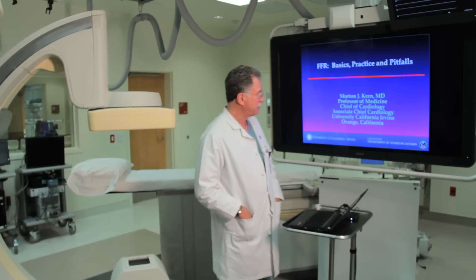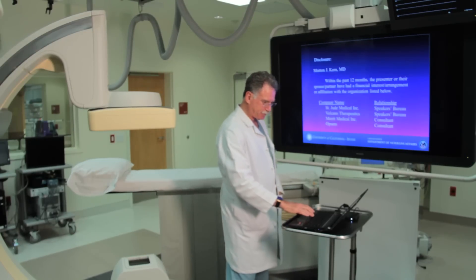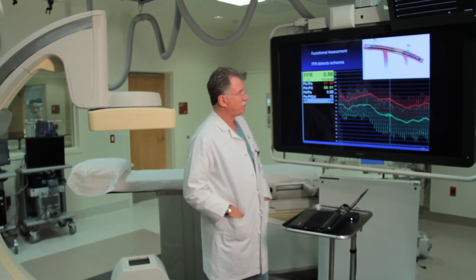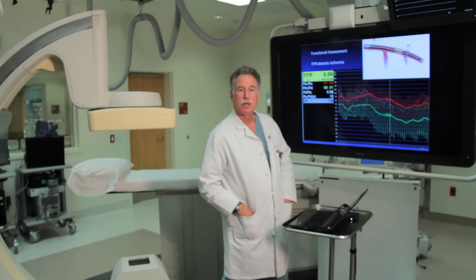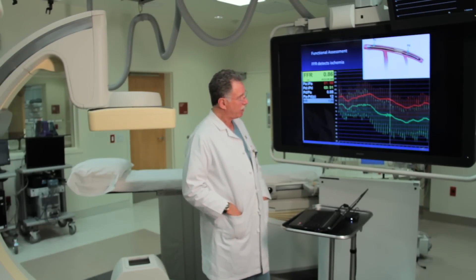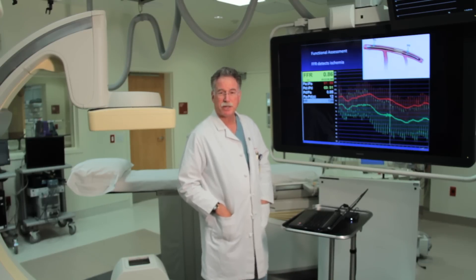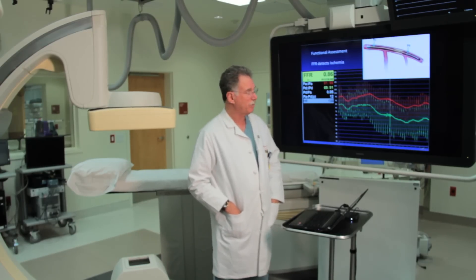Let's start with the basics, practice, and pitfalls. To measure FFR, we have to insert the pressure wire across the stenosis. There are five steps prior to getting to that point, which we will talk about briefly.